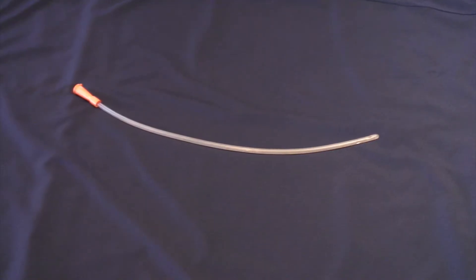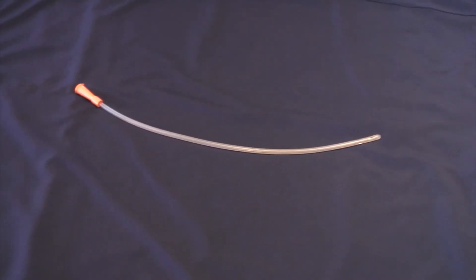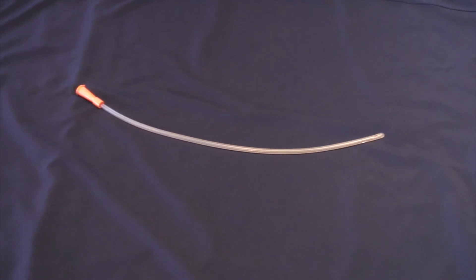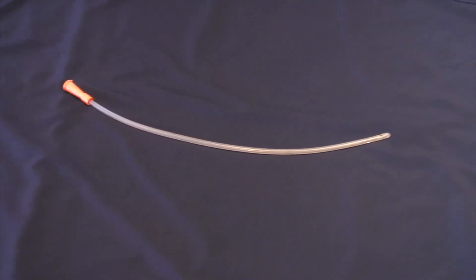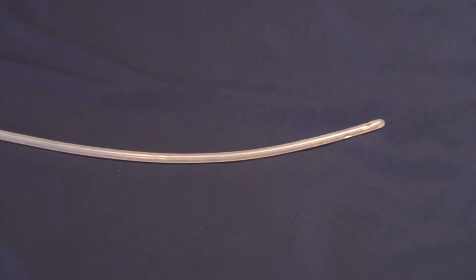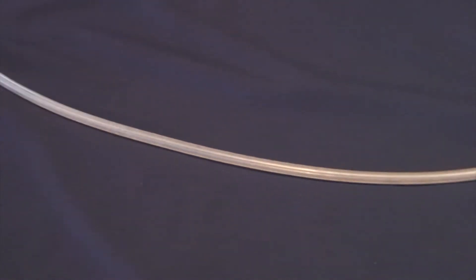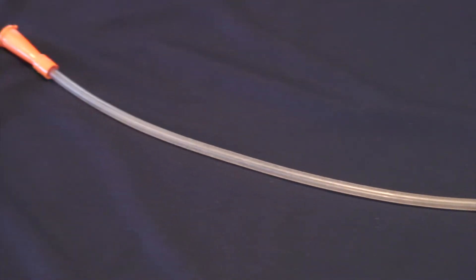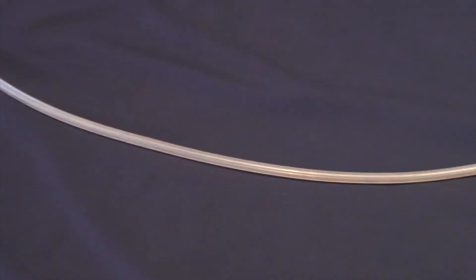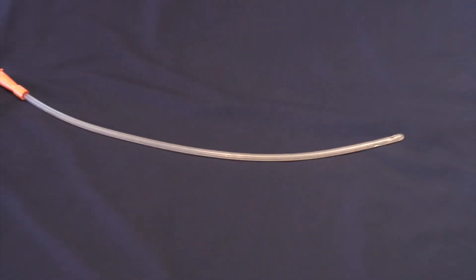This is called a Nelaton catheter. It is used for clean intermittent self-catheterisation in patients with reduced bladder tone and a continent sphincter. There is no balloon on the end — it is inserted, the bladder drained, and then withdrawn.